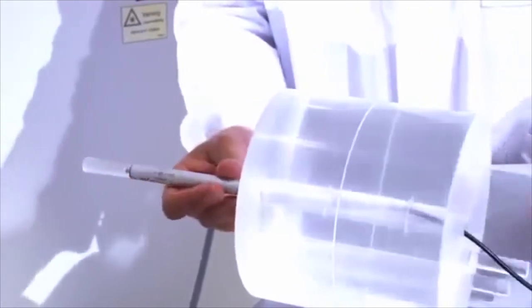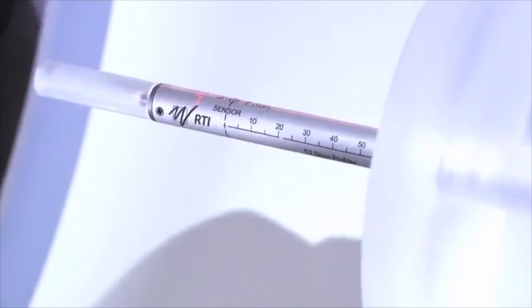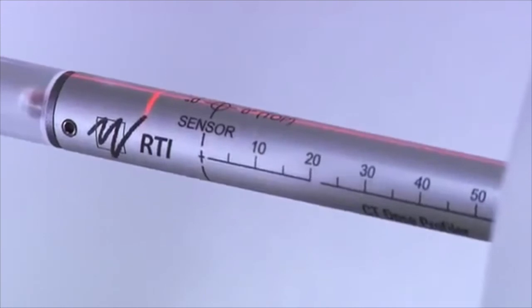First, you have to put the CT dose profile detector into the correct position. A tip is to use the phantom you just used as a stand. Align the detector with the lasers.